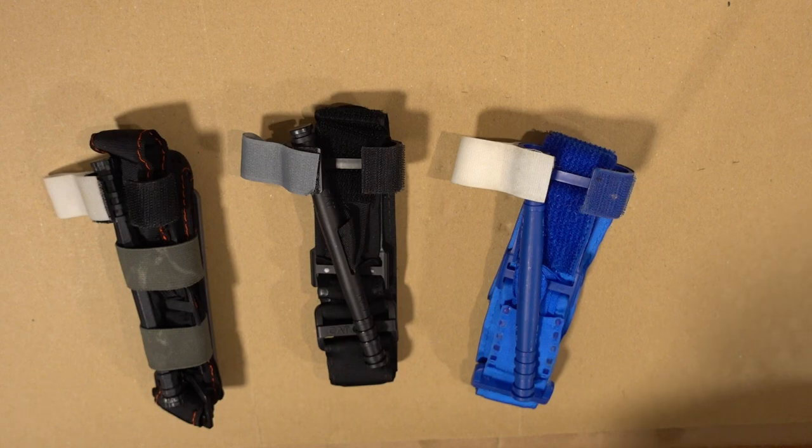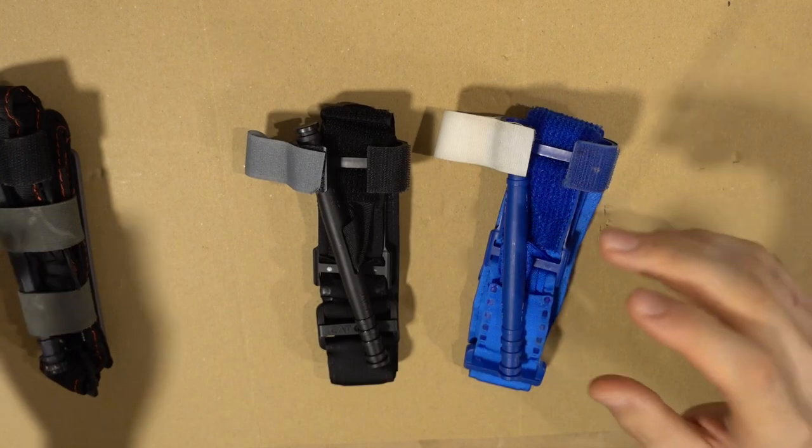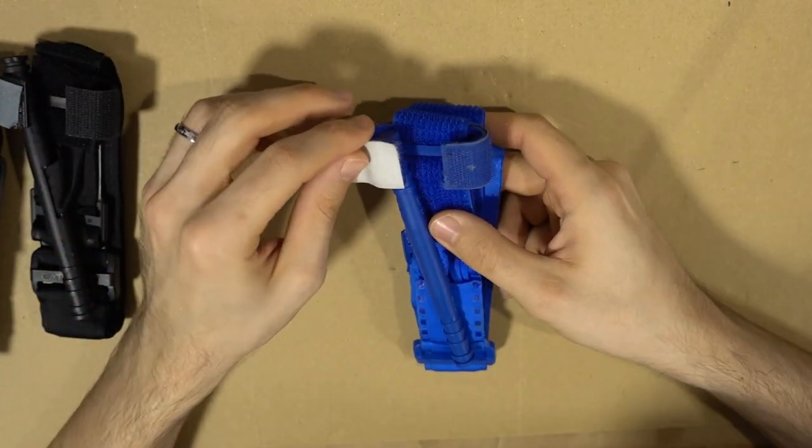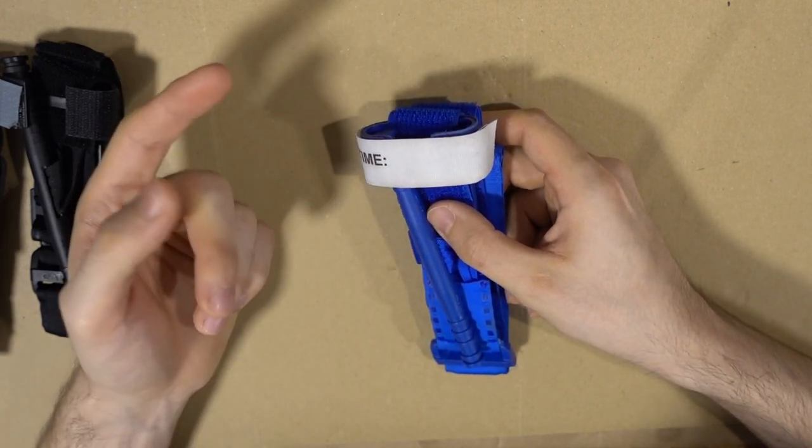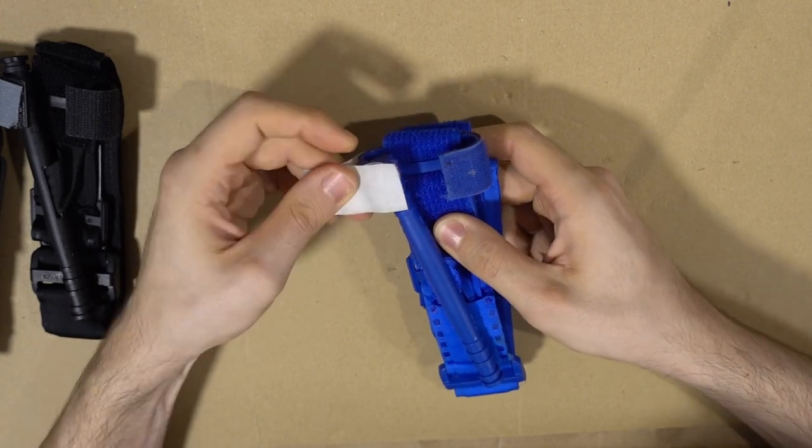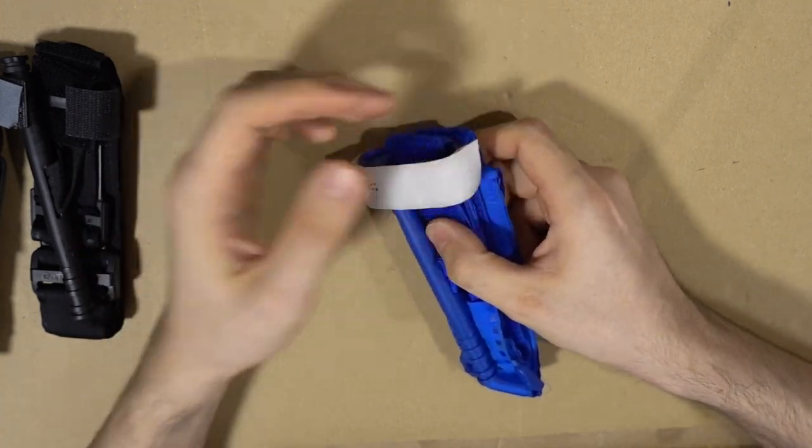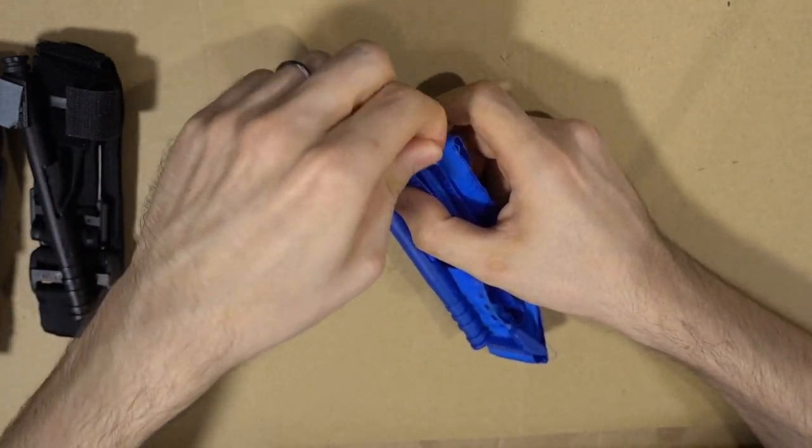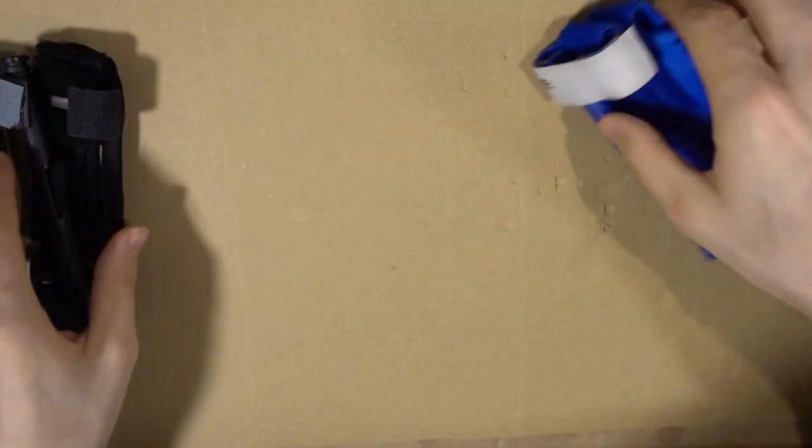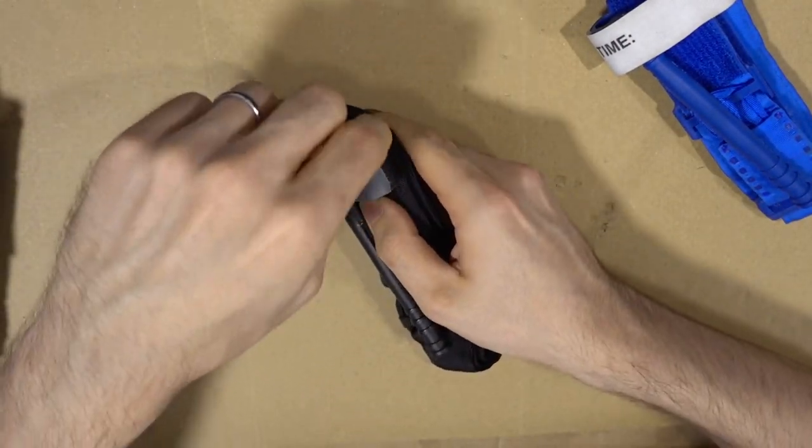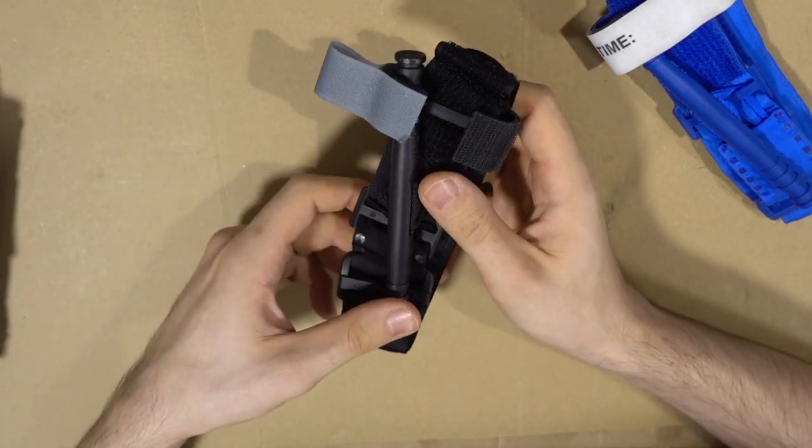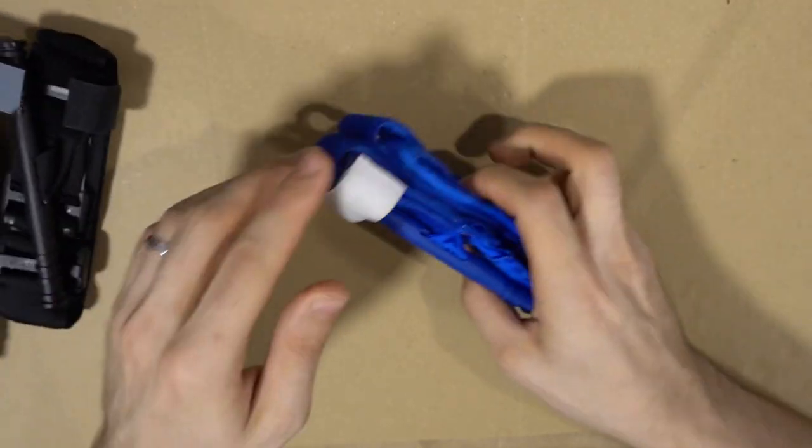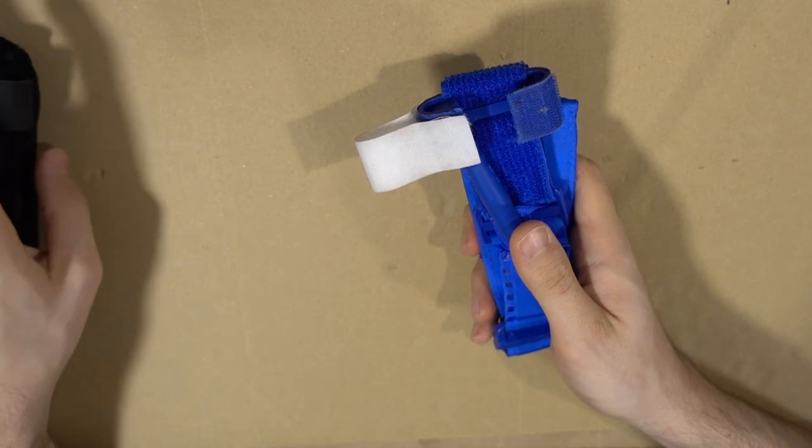The next thing is how to store your tourniquet. With all of the brands or models of tourniquets, the first thing is you want this little tab not closed as it would probably make sense if you look at it, but store them like this. The reasoning behind this is now you need to apply it, you're stressed, and you try to fumble this. If they're brand new, they really stick, and this needs motor skills to remove. If you're stressed you won't have them, or if you're wearing gloves this is not going to help. So have them like this and save yourself some time and trouble.